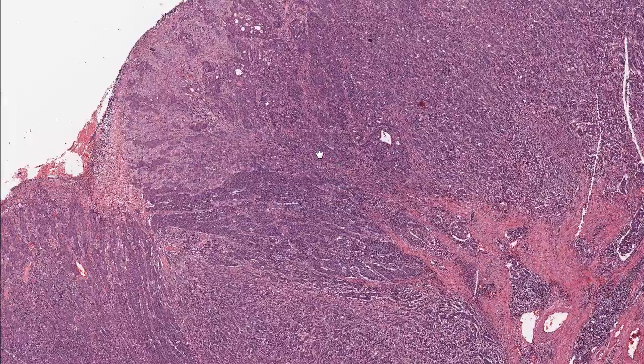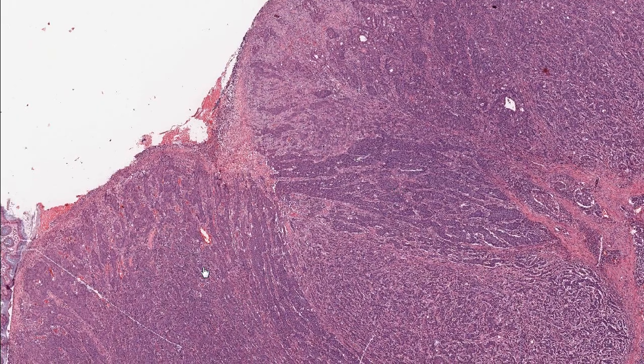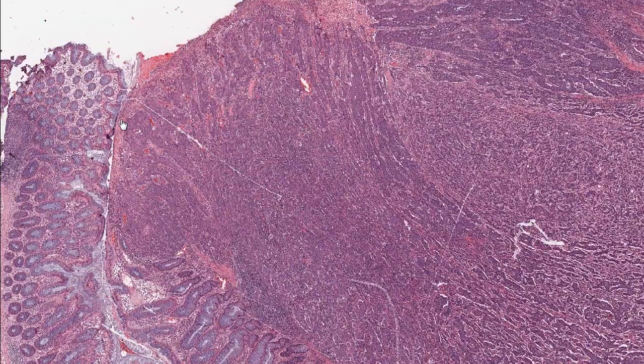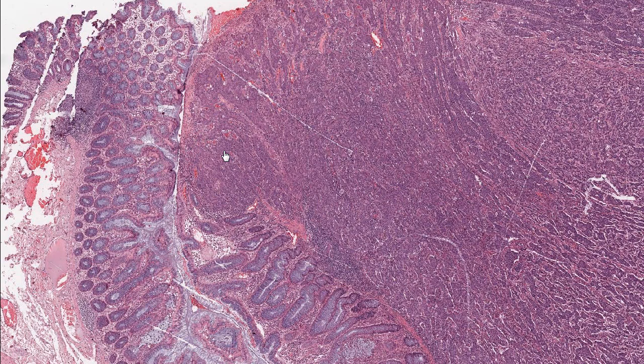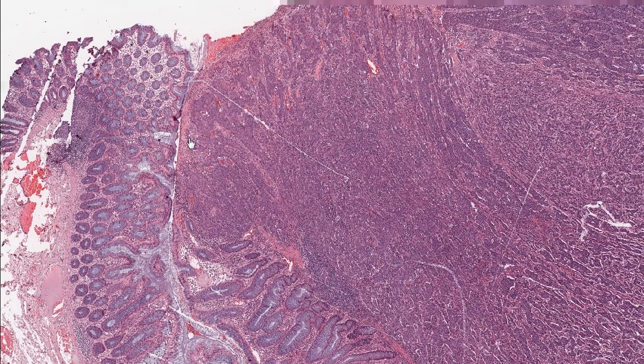So there are also a number of molecular things that we look at in these tumors. I'm a molecular pathologist by training and trade, so forgive my description of the histology, but there are a variety of different ancillary studies that we can do to help in the care of these patients.